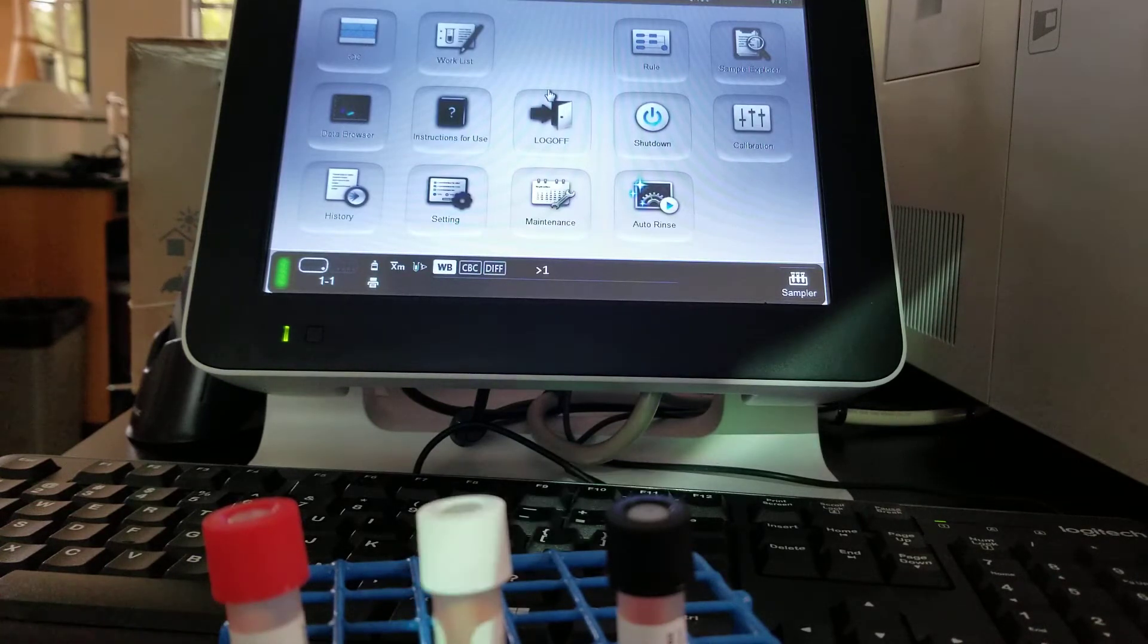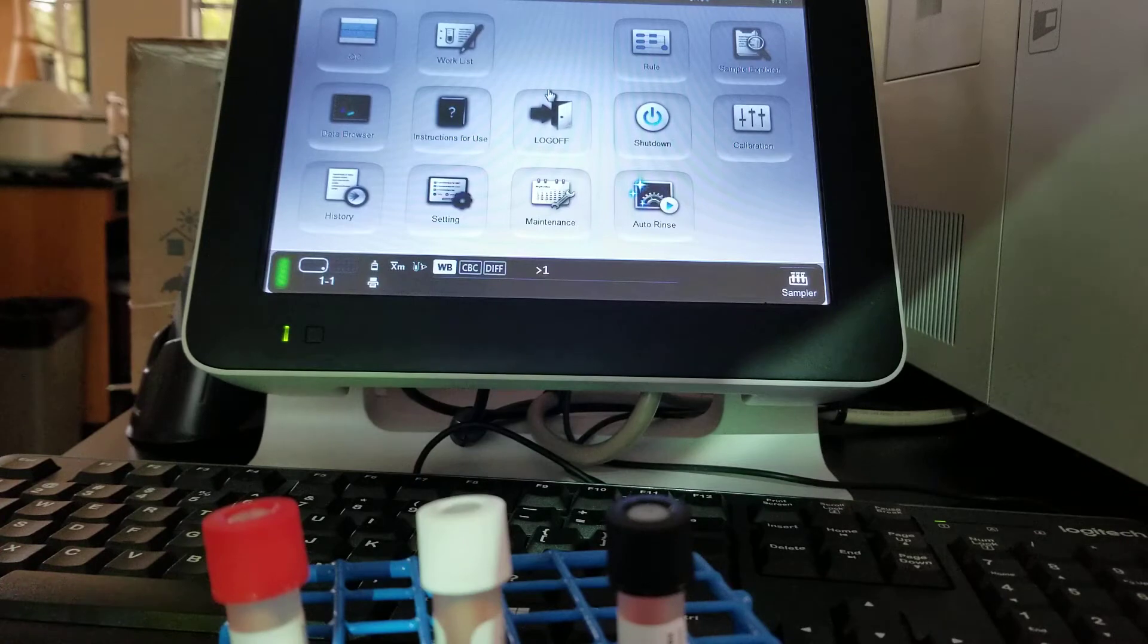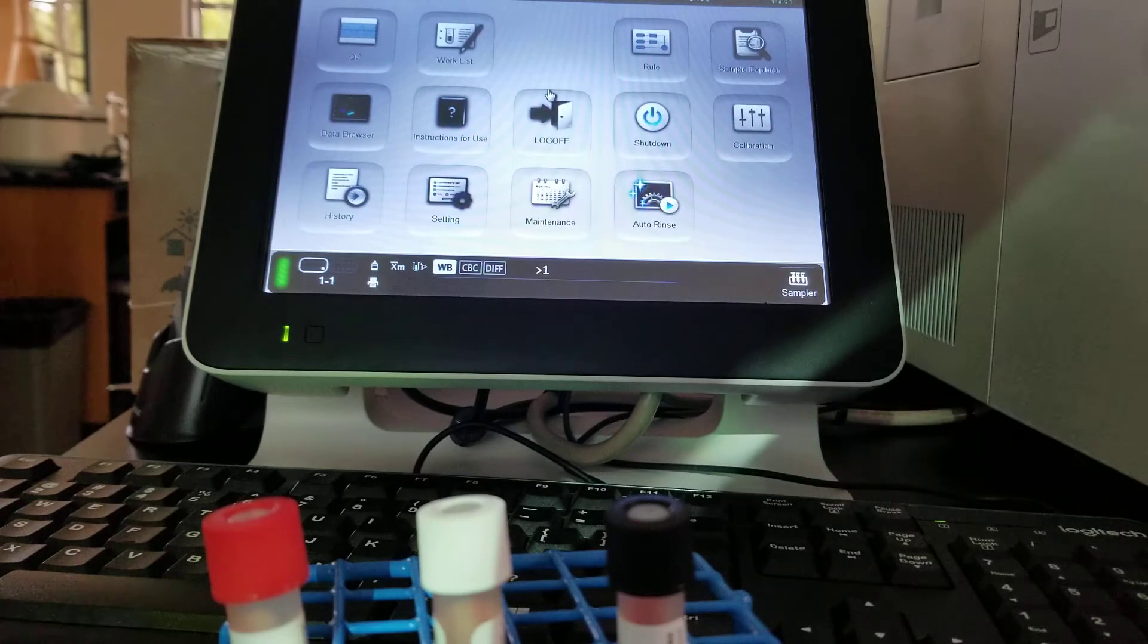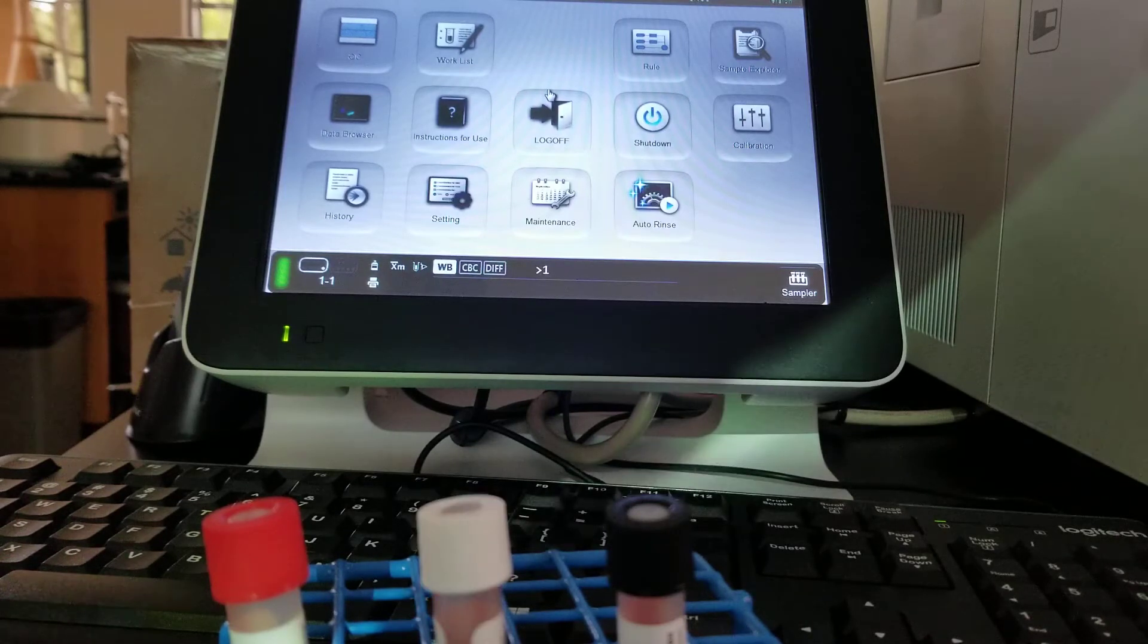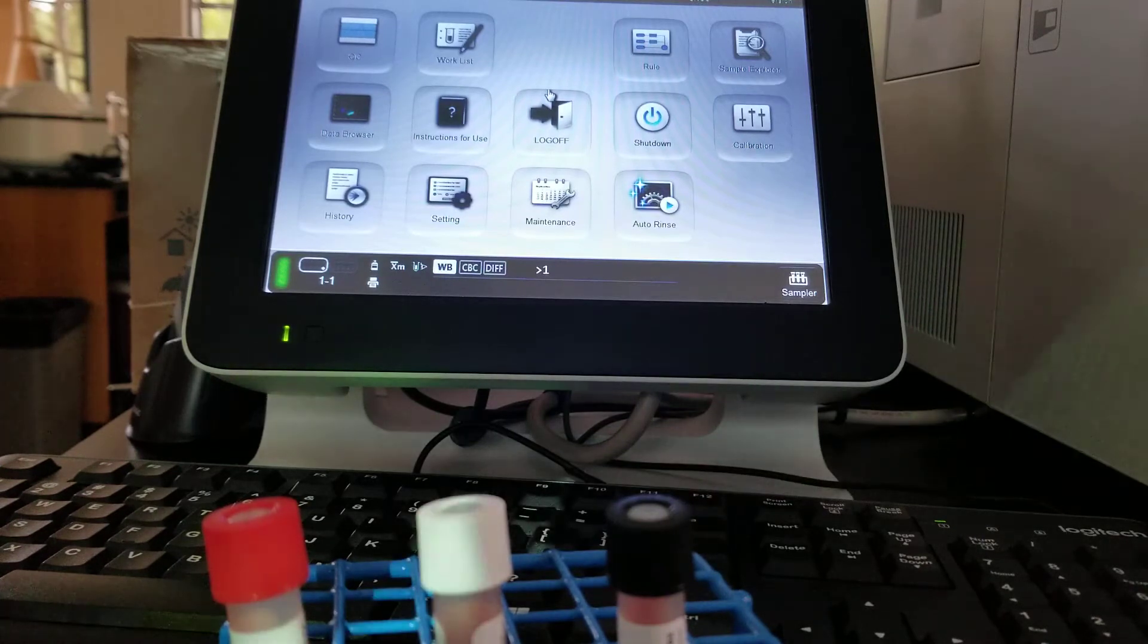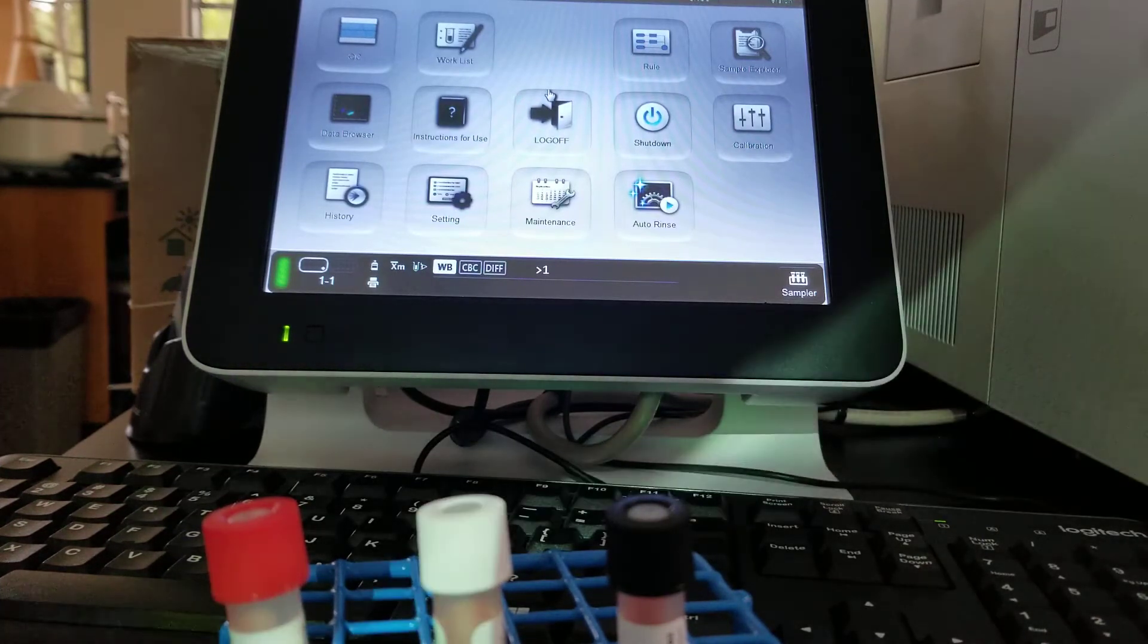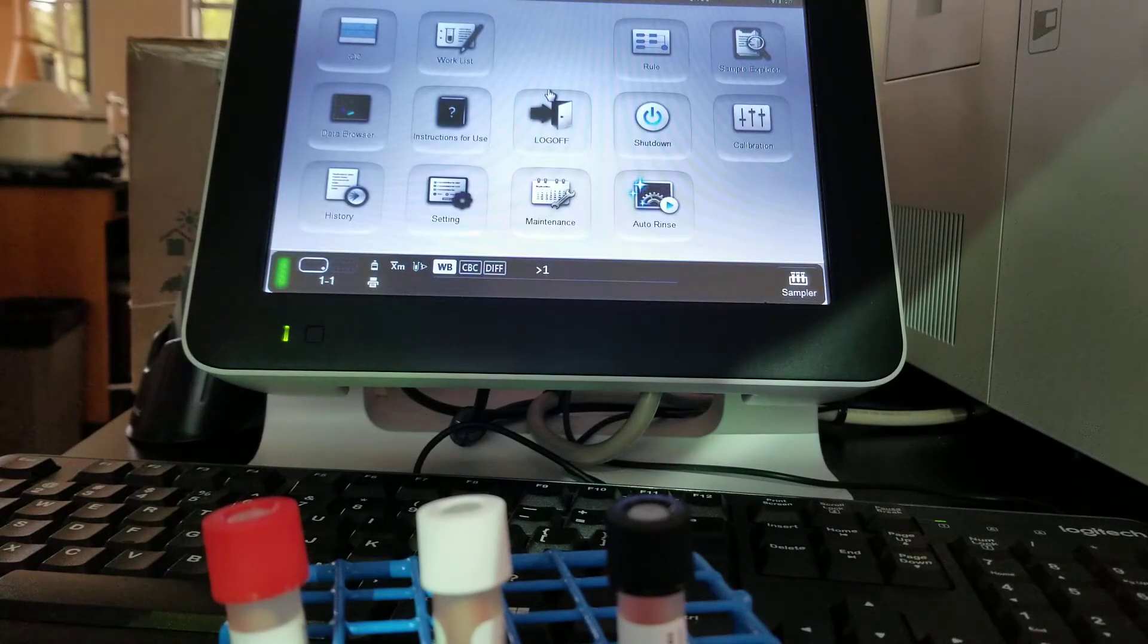For most of your class periods, it's going to have been done and you wouldn't need to worry about it. If you had a coagulation class instead of the regular CBC type of running lab, then you would want to do this before you started anyway. We're going to make sure that it's in the ready state. It is. And I know that because I have the green light here.